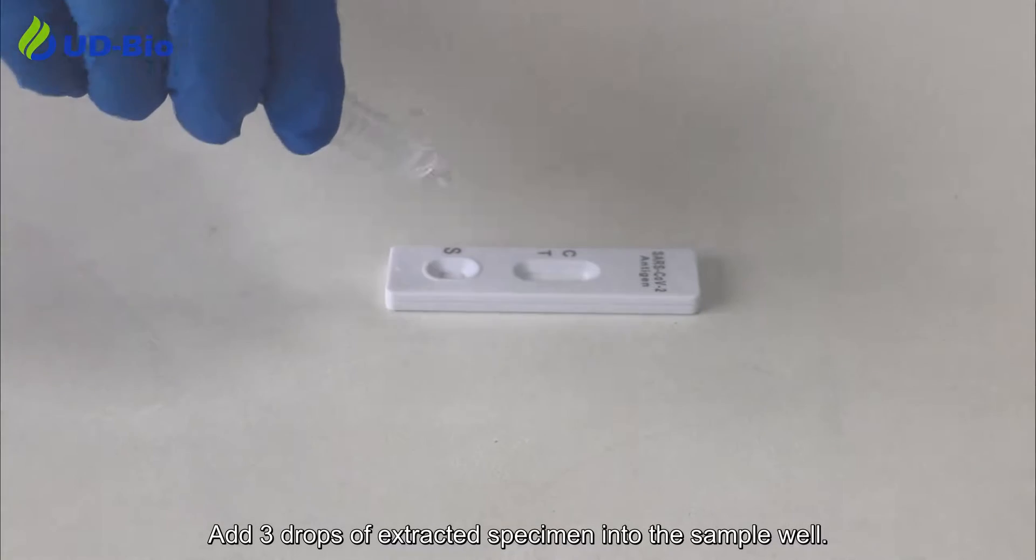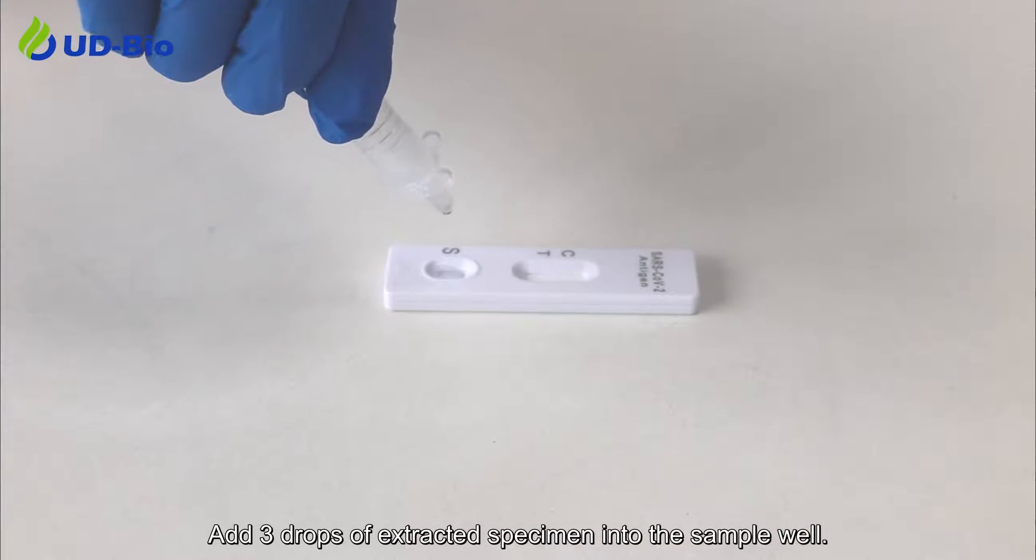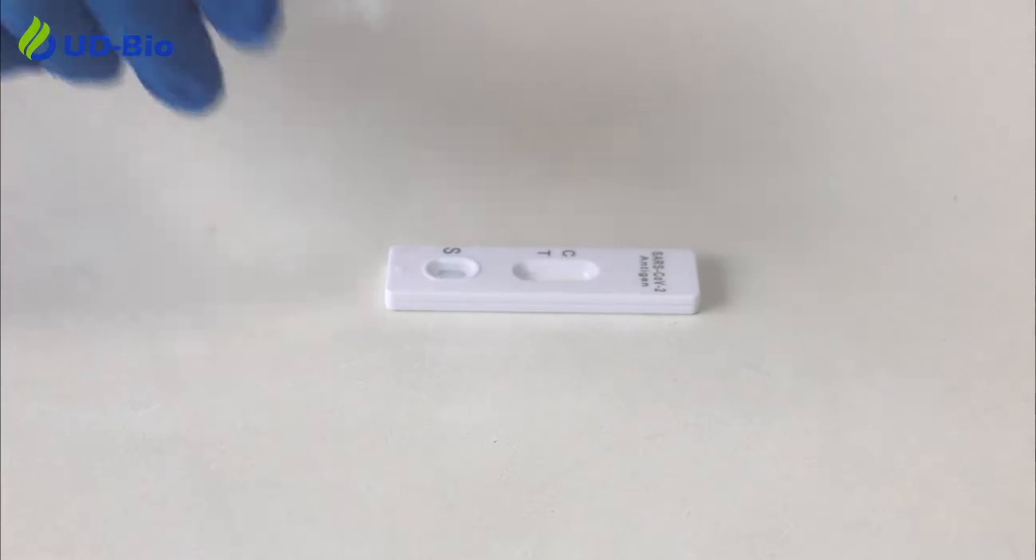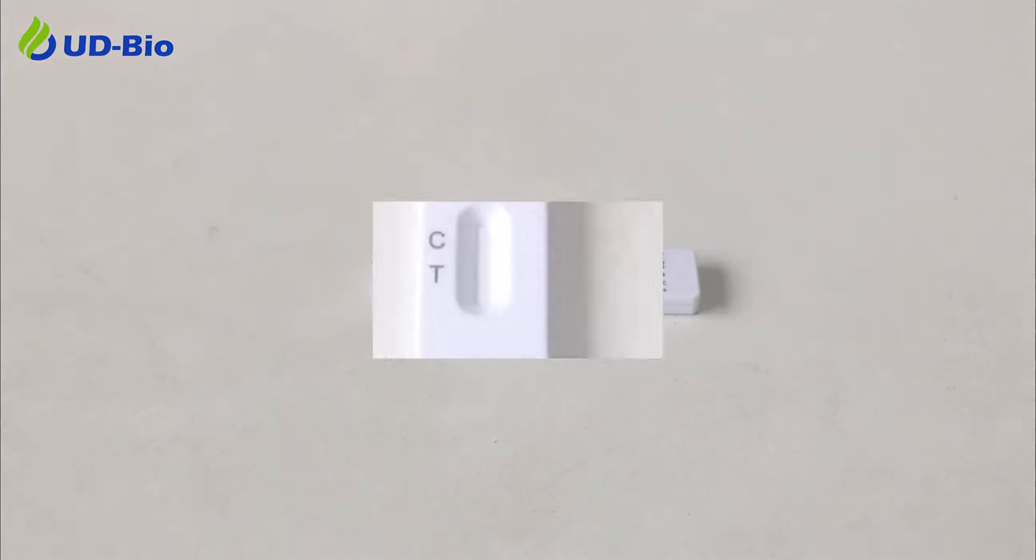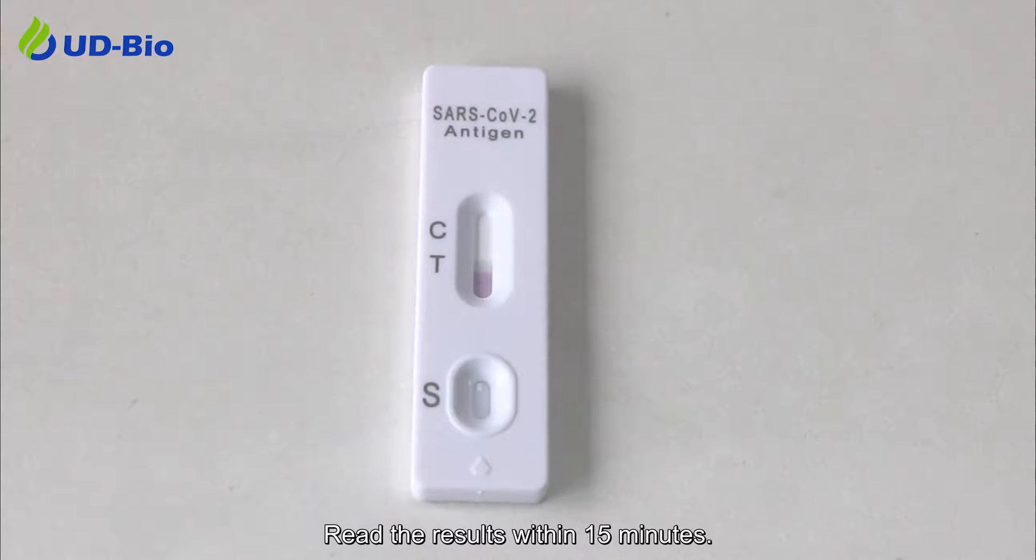Add 3 drops of the extracted specimen into the sample well. Read the result within 15 minutes.